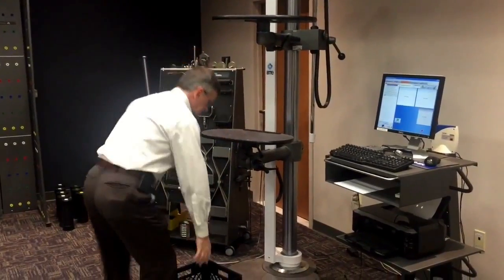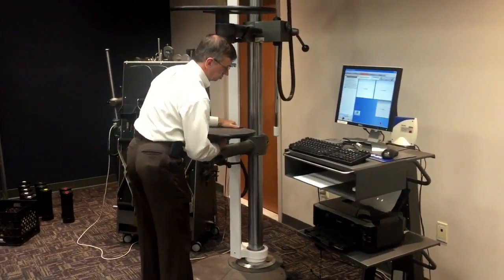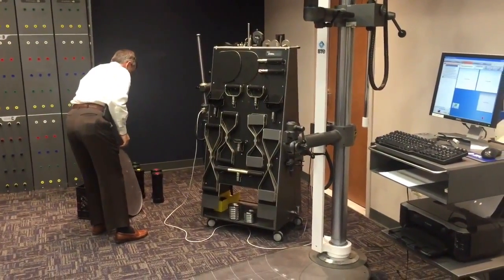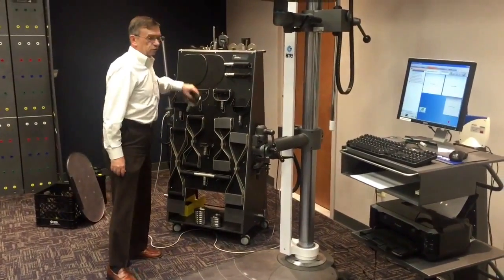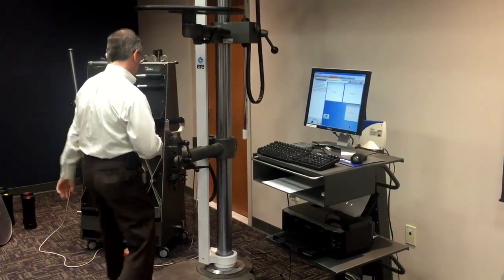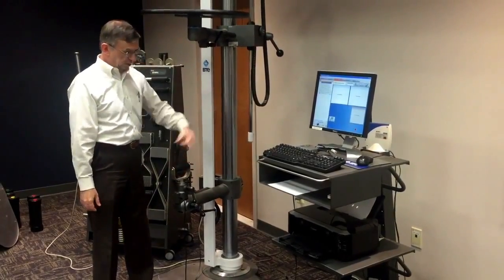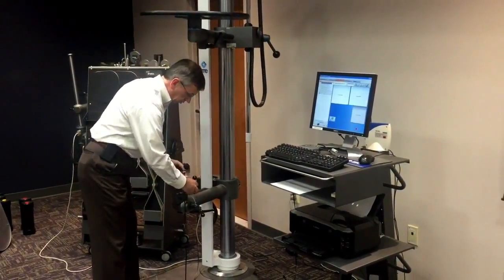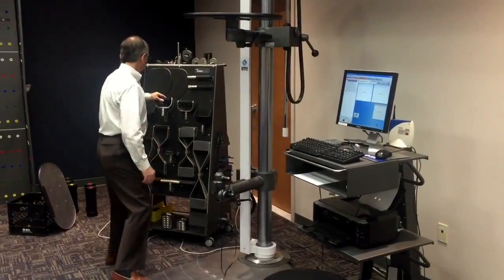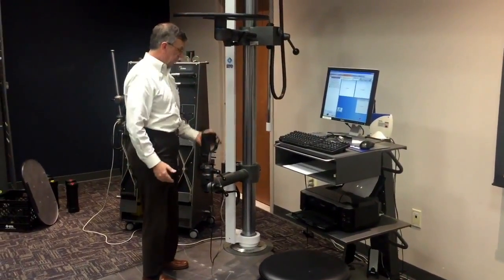When the lifting test is finished, these can be put to the side, the shelf can be removed, and we can start to use some of our other attachments. For example, if I wanted to do a simple one-handed lift, we can insert that lifting handle, and again we can change the height. So for somebody who has to lift down low, that's going to be recorded directly, or that can be changed to different positions and shapes. If we have to lift a box, this is a different type of handle to match that box shape.